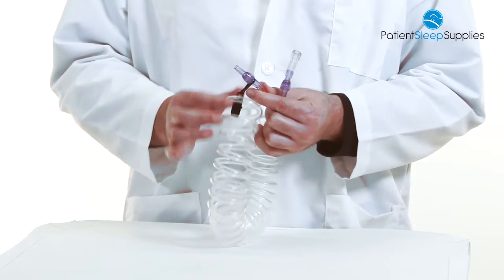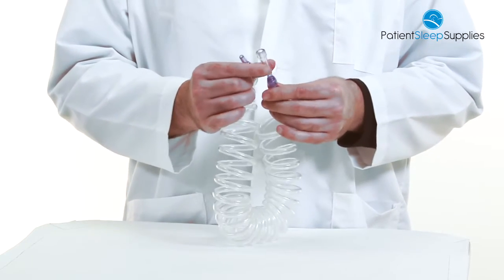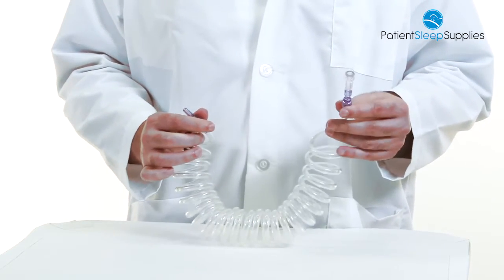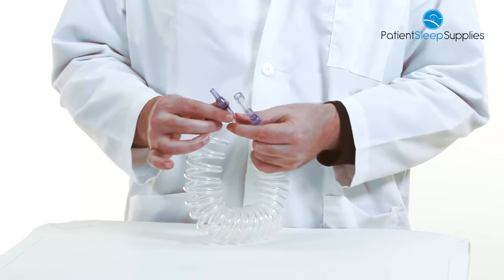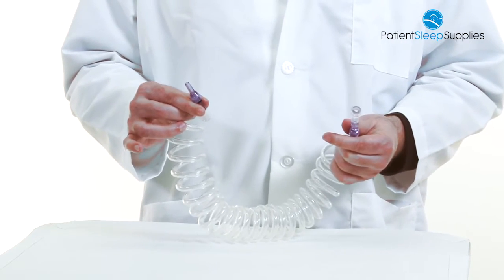We have swivel connectors on both sides. You've got your female connector that will go to the oxygen source or oxygen concentrator, and on the male end will connect to your cannula.